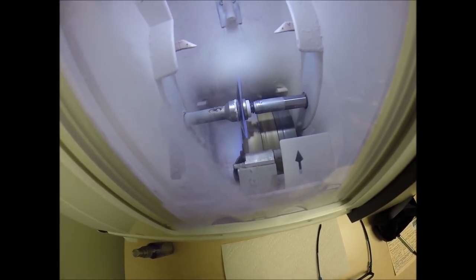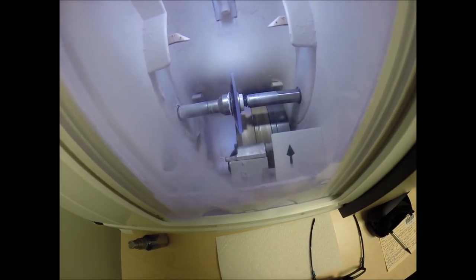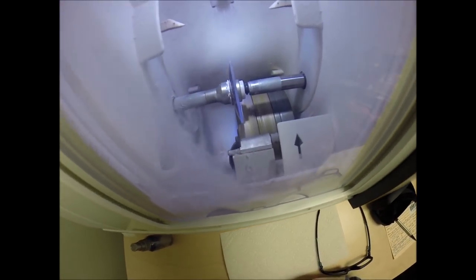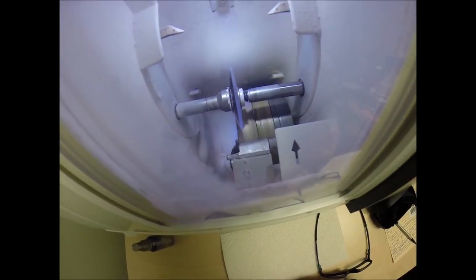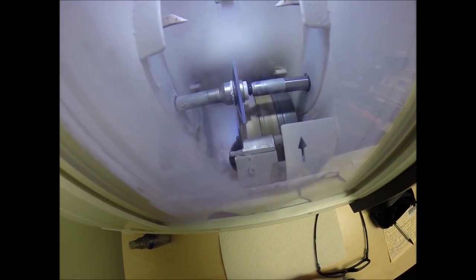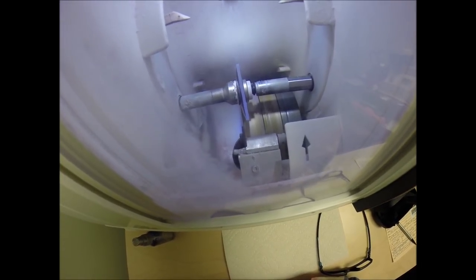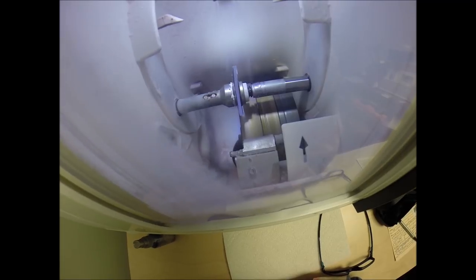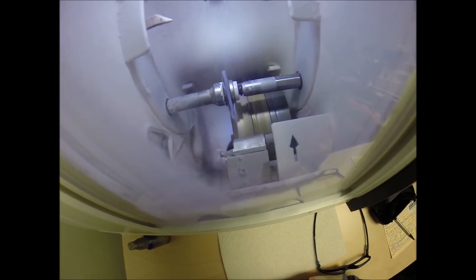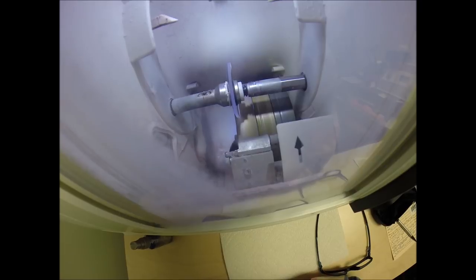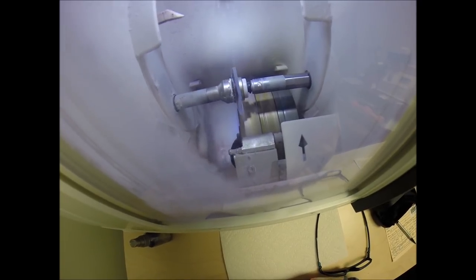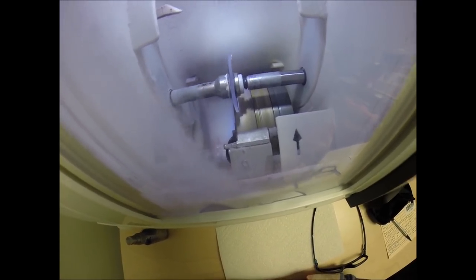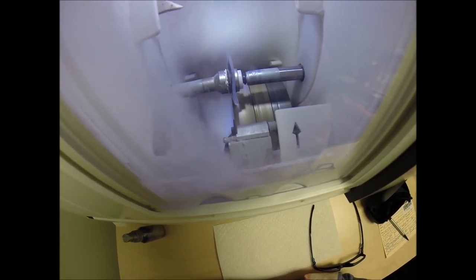The light you see flickering is water to catch the optical sawdust. Polycarbonate lenses cut dry, meaning no water sprays onto the lens during the cutting cycle. Plastic high index plastic and Trivex cuts wet. Water will spray onto this lens for the last 20 seconds to wash away the optical debris.